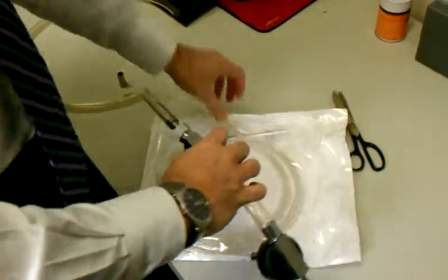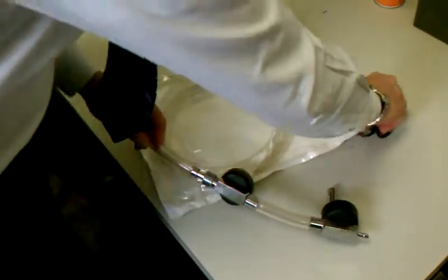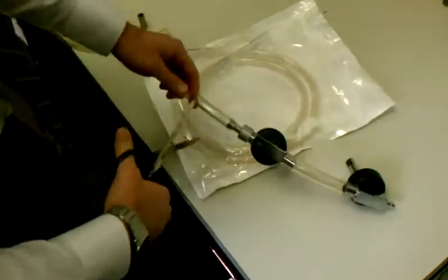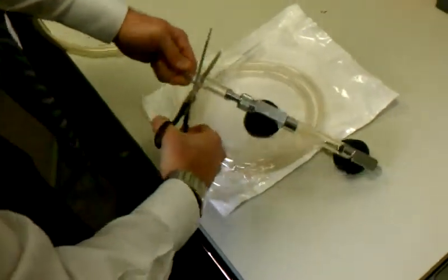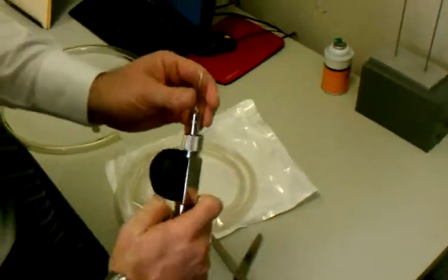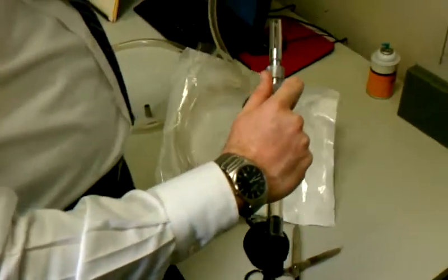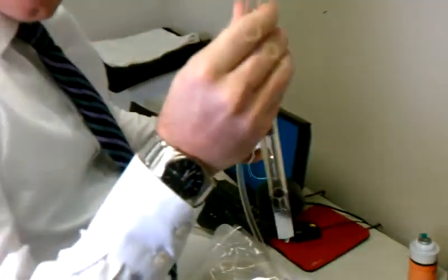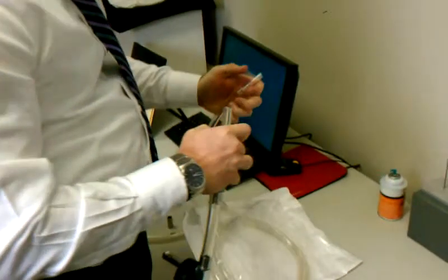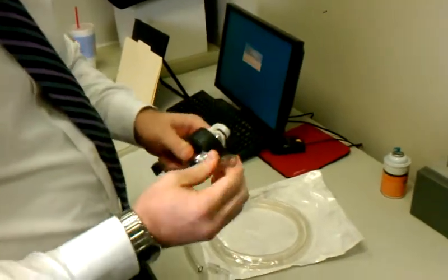If you don't want to have to cut your tubing every time, what you can do is actually just cut on the first one — or basically sacrifice one of these — and cut a little 2-inch piece of tubing like this. That then becomes an adapter so that every time you get one of these, you can simply use the plastic and put that onto the plastic side, and then take this off and autoclave this entire assembly. So there's two ways to do it: one is to just cut off the tubing, or you can sacrifice a 2-inch piece of tubing and that becomes your adapter.